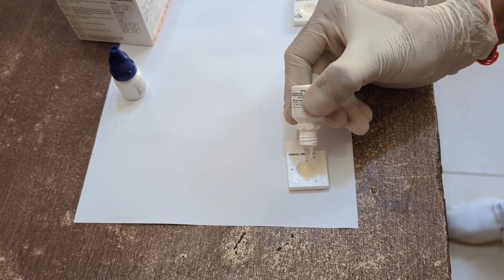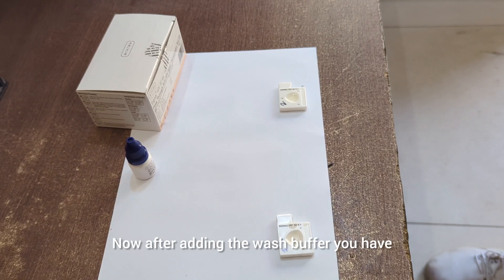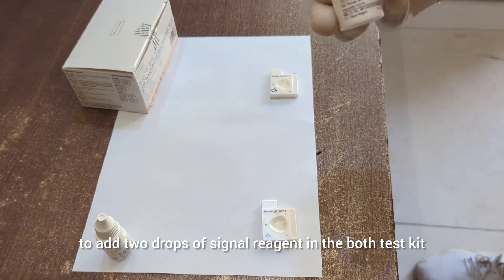After adding the patient serum, now again you have to add two drops of wash buffer in test kit number one and then in test kit number two.